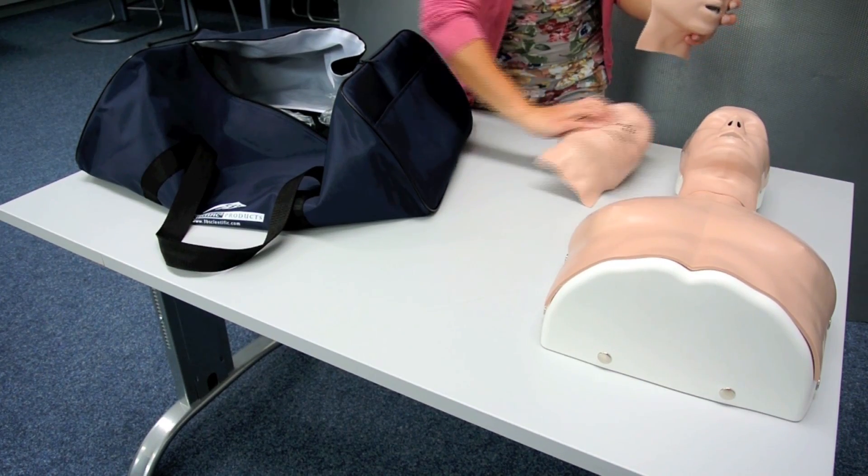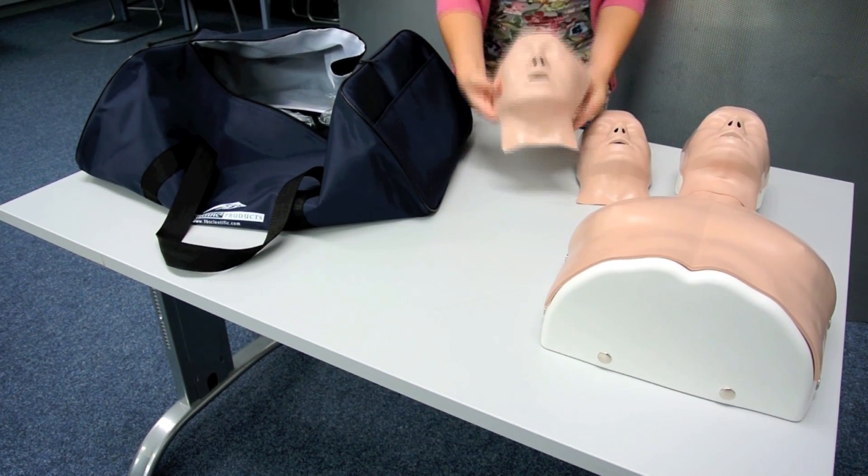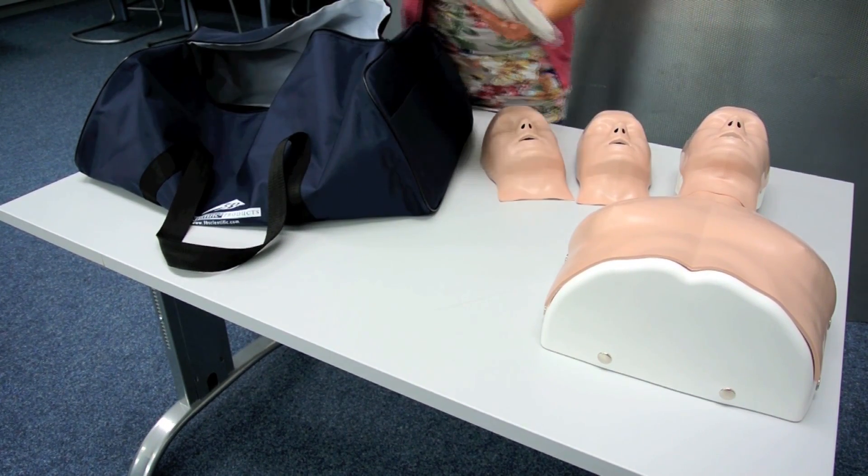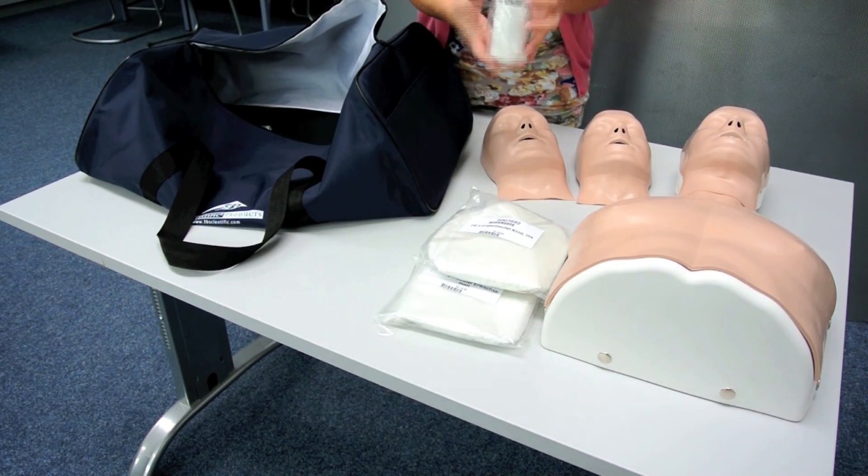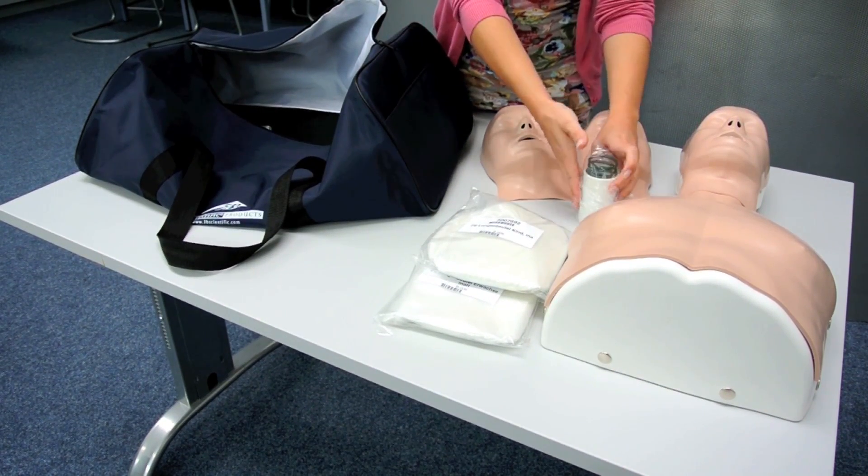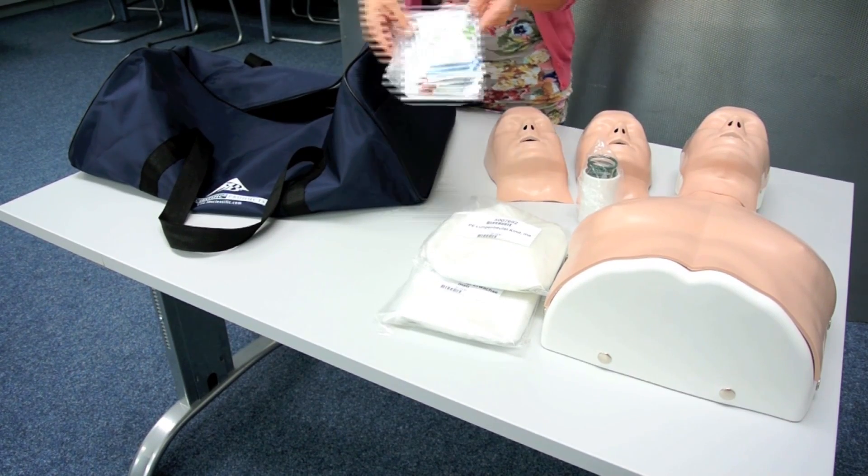BasicBilly is supplied with two additional face masks, replacement adult and child lung bags, additional compression spring, and cleaning solution.